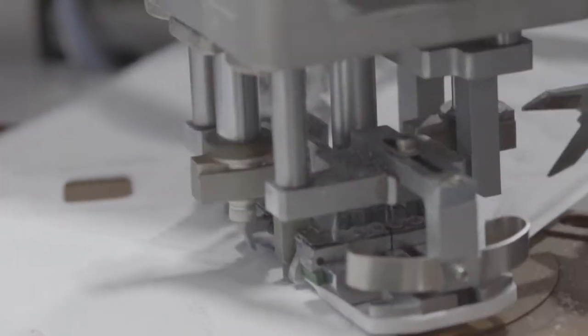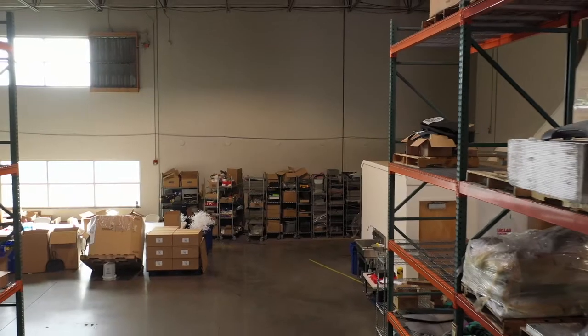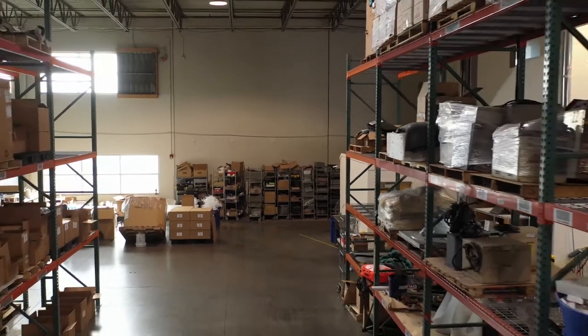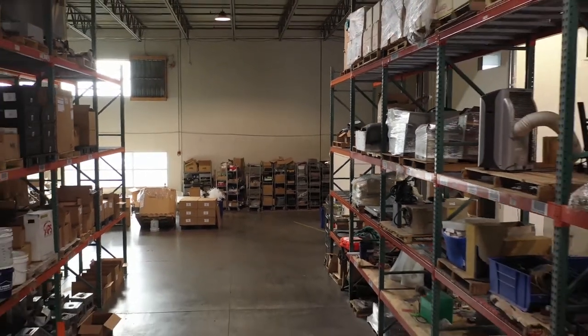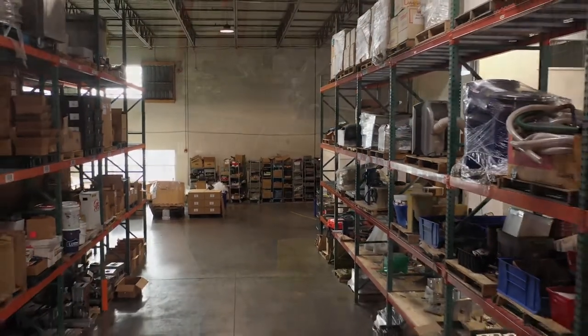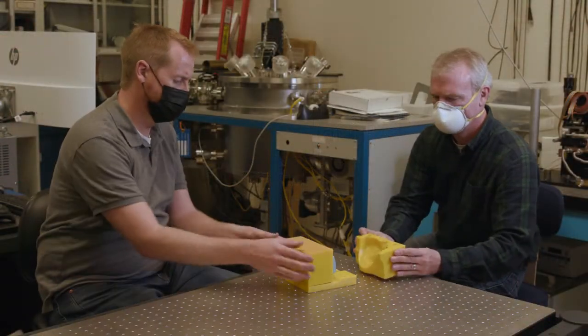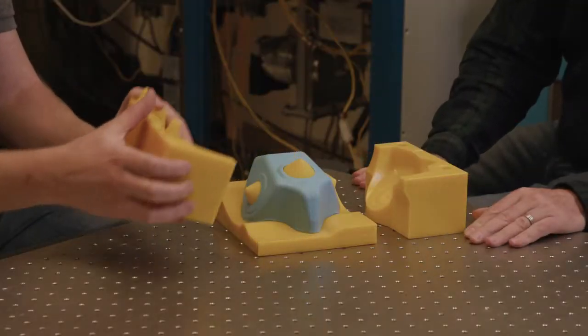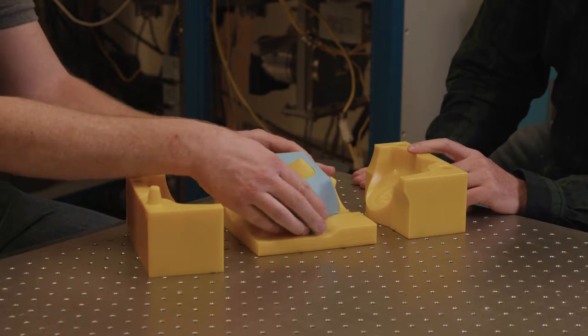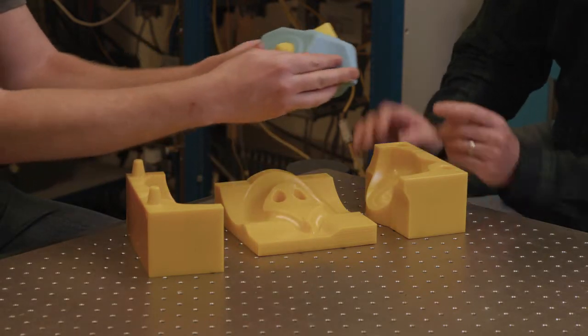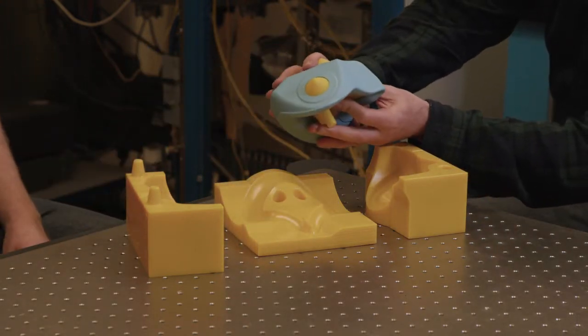We were looking at that issue and making sure we solve that problem. This mask is injection molded, so it's easily manufactured within the United States or within another country. It is not going to be reliant on foreign supply chains.